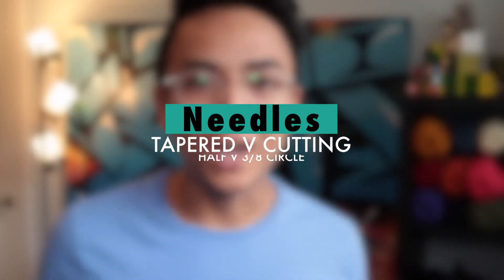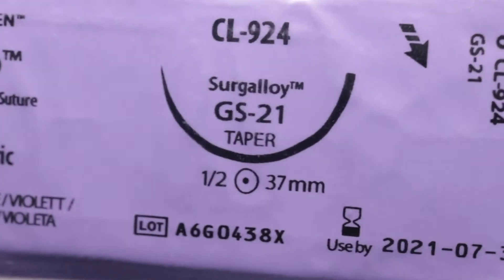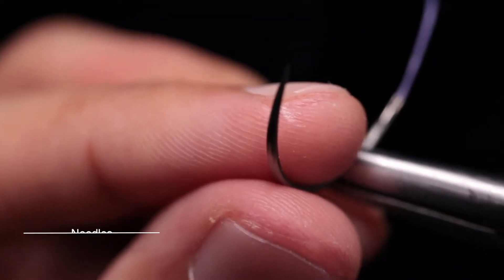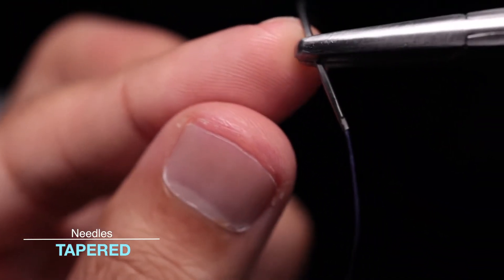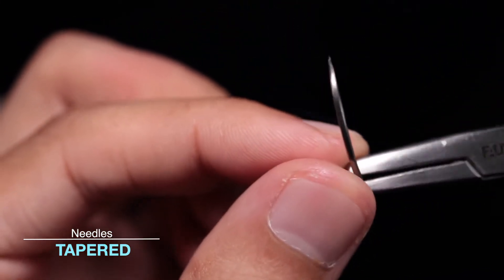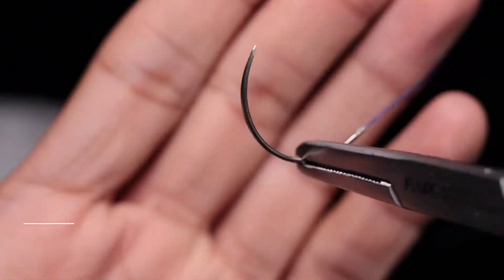Concerning needles, there are three types that you should be aware of, which are tapered, conventional cutting, and reverse cutting. Taper needles are represented on the package with a circle and a dot inside it. Taper needles are the ones you're probably used to seeing on a sewing needle or a safety pin — they're really just round and have a pointy end. Taper needles are very common for large sutures and are general purpose needles for the body.